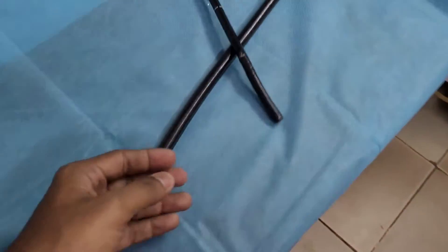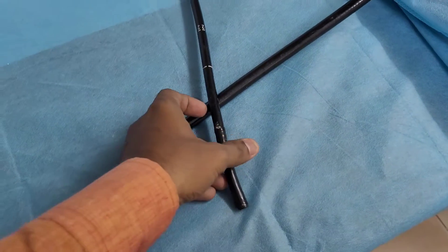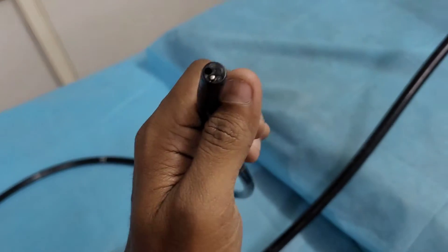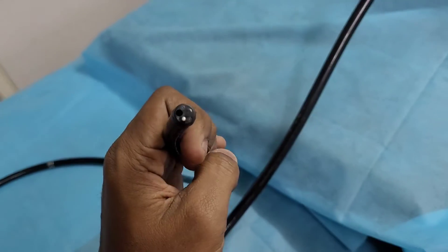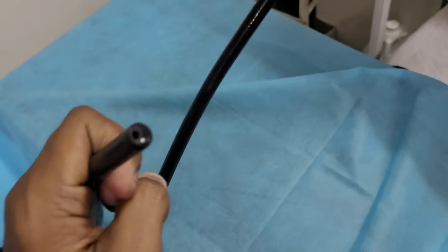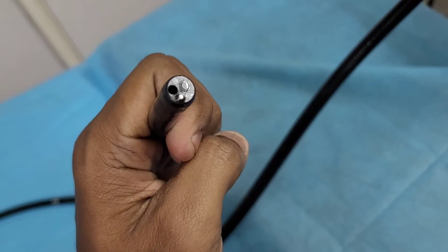Also, there is a lock system on the endoscope. I'll explain that before we look at the camera, light source, and water jet at the tip.